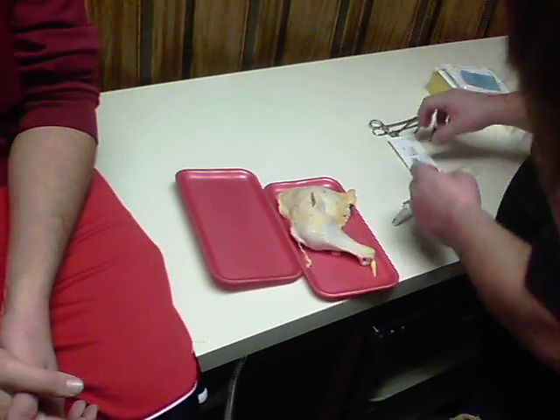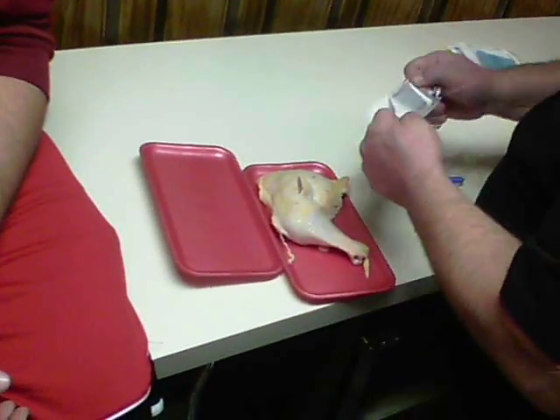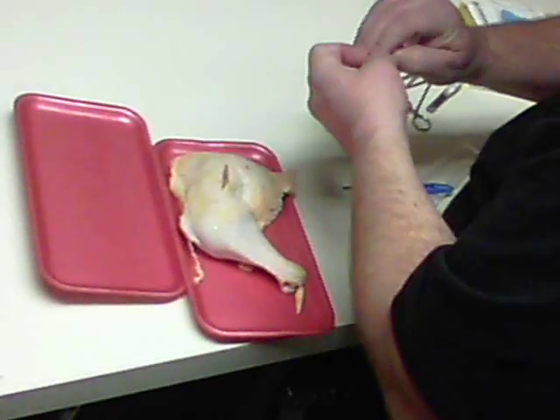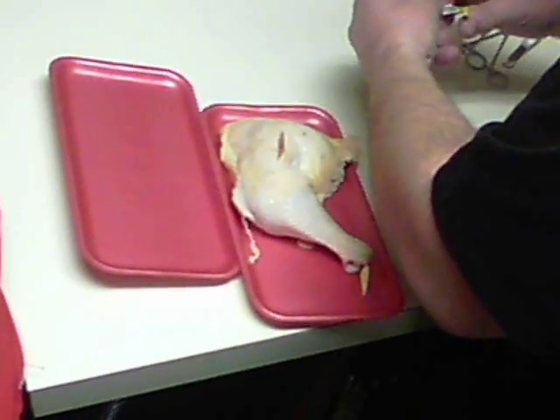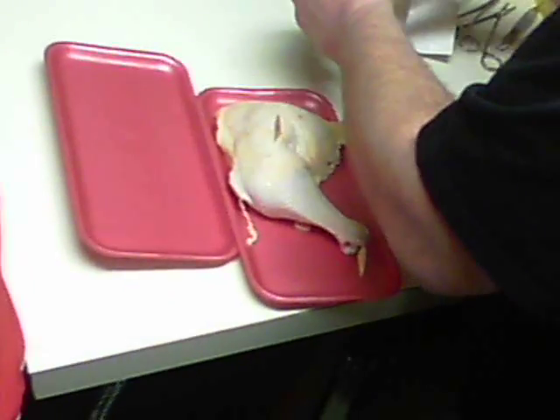The gut suture. This is the stuff I don't ever use in the office, which made it good to bring. When you open this pack it's actually sterile. Not anymore. Now you called it gut — what is it actually made from? Gut. Seriously? I think so, yeah.